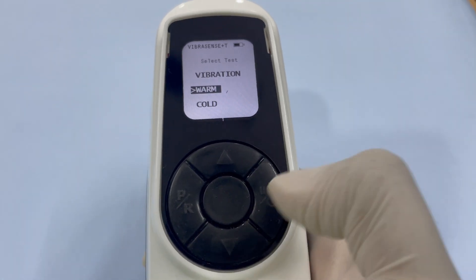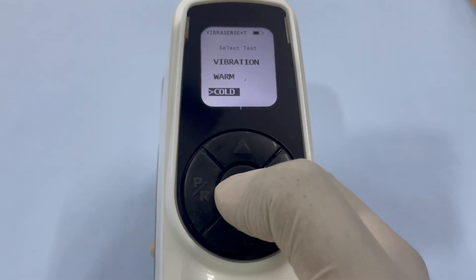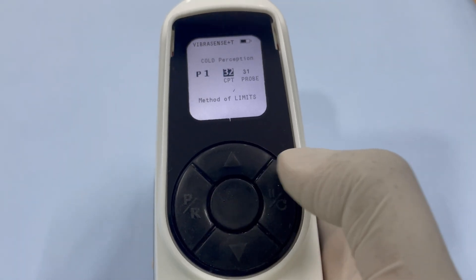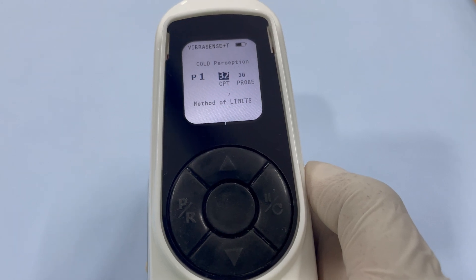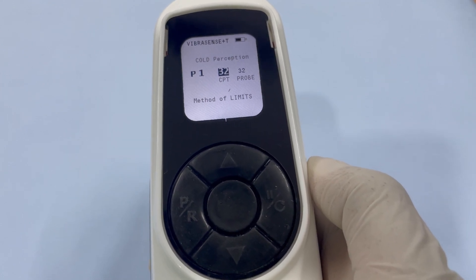The previous test conducted will be highlighted. Use the up or down arrows to highlight the cold test and press the center button to select it. The default position will be P1 and the CPT will be set to 32 degrees Celsius baseline. The probe temperature will be displayed on the right. Wait until the probe reaches the CPT set point.